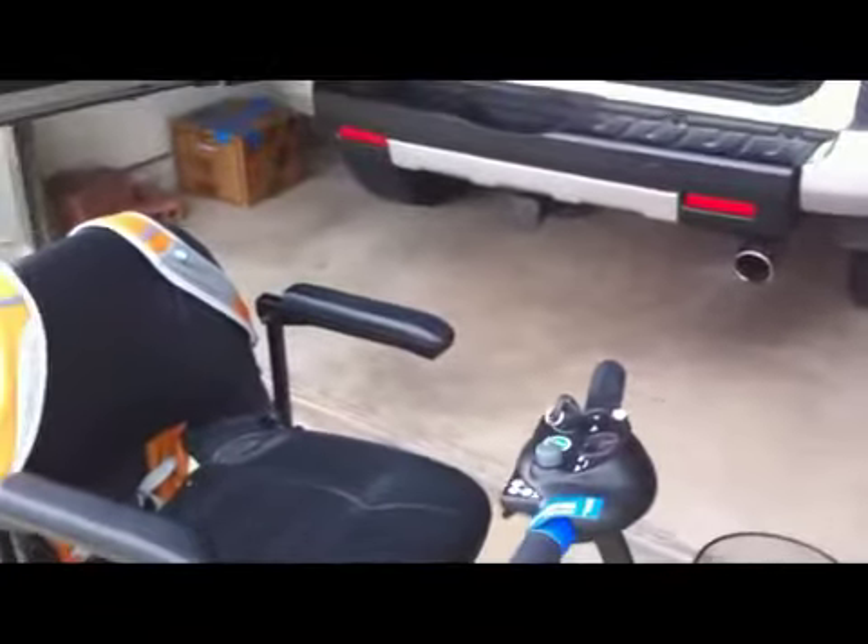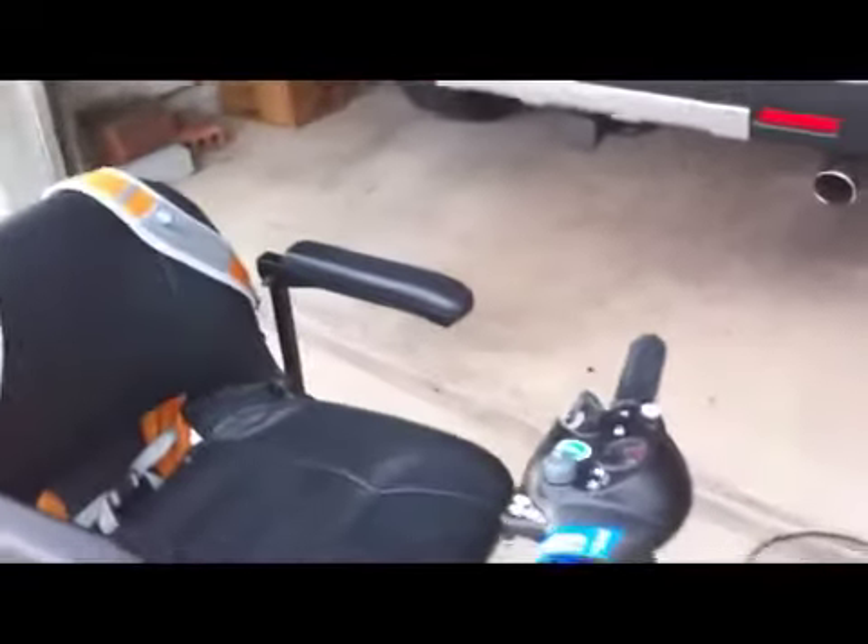This comes apart in how many pieces? It comes apart in four pieces, and I believe no part weighs more than 20 pounds. So let's go ahead and take it apart, because it fits in the back of our car — or SUV. I always call it a car, but it comes apart.